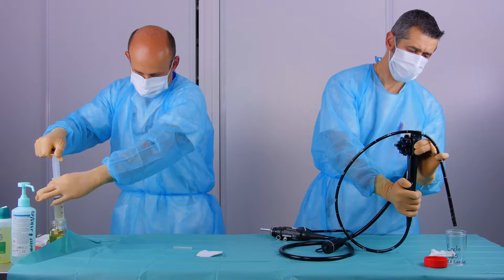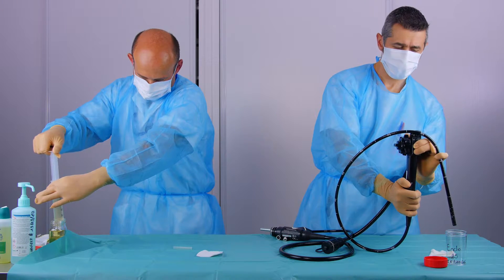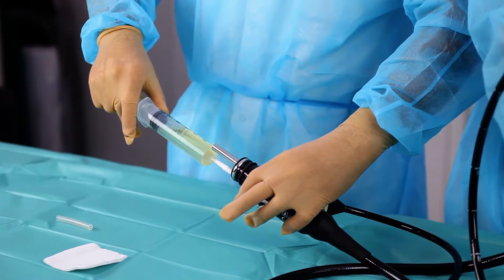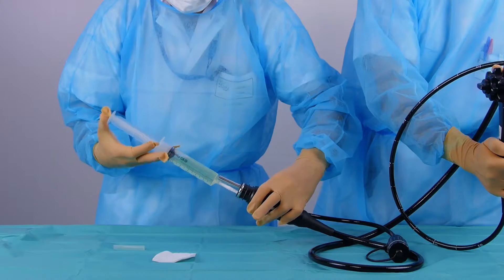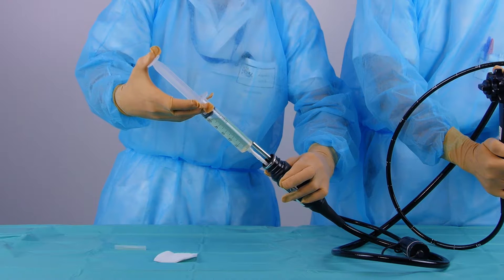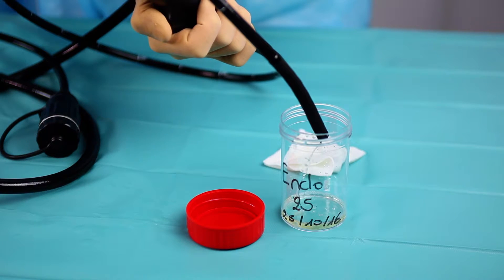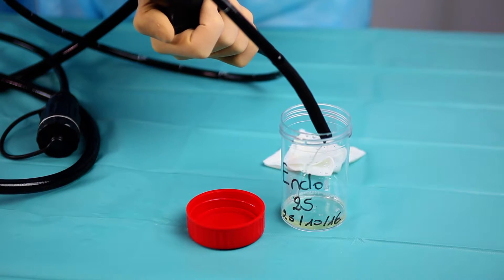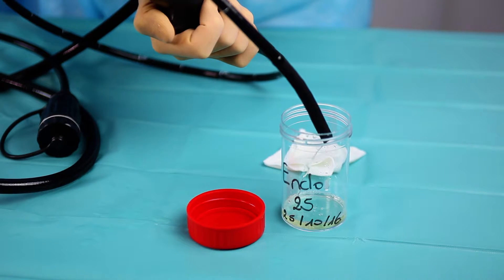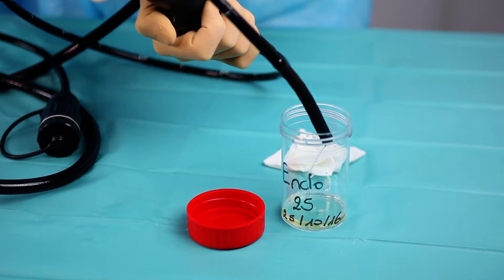Fill the syringe with sampling solution, then inject the solution into each canal — 200 milliliters of solution in total. The liquid is retrieved in a sterile pot. Be careful to ensure the distal end does not touch the sides of the sampling bottle or its contents.